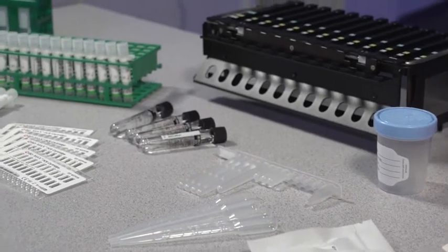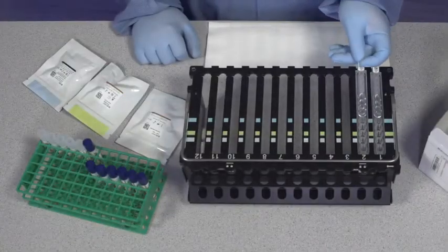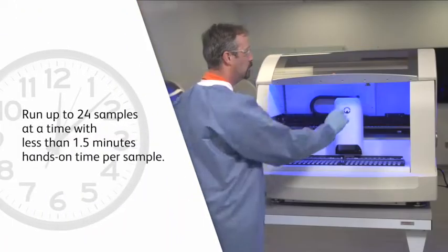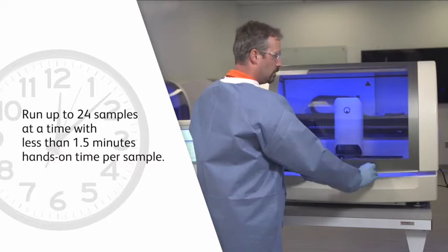The BD MAX system offers you a simplified and automated workflow, allowing you to run up to 24 samples at a time with less than one-and-a-half minutes hands-on time per sample.